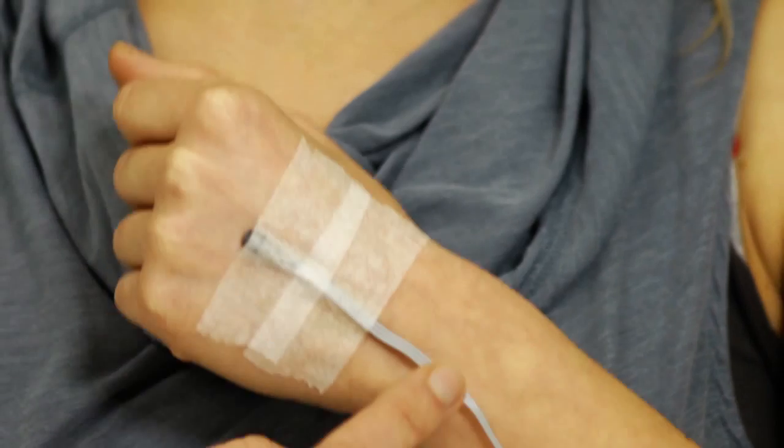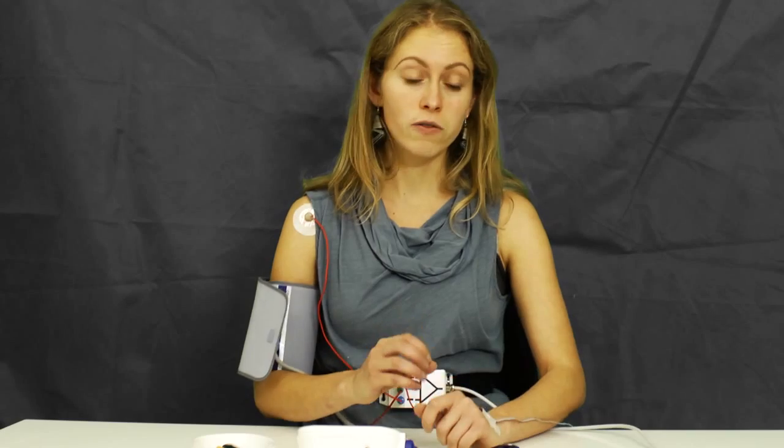Let us go through the different sensors, starting with temperature. We're going to measure temperature using this sensor here on my hand. The reason for that is that while I'm smoking the cigarette, the effects of nicotine will cause my blood vessels to contract, and therefore the blood flow down to my hand will slow down and cool down along the way. So we should see a slight drop in temperature towards the end.